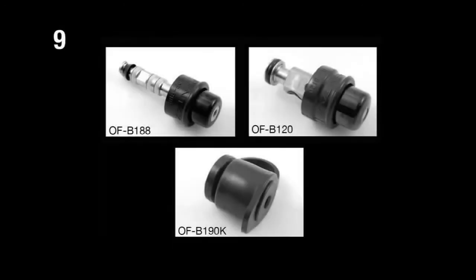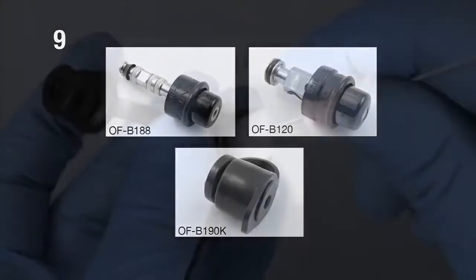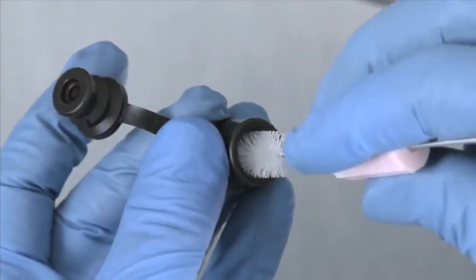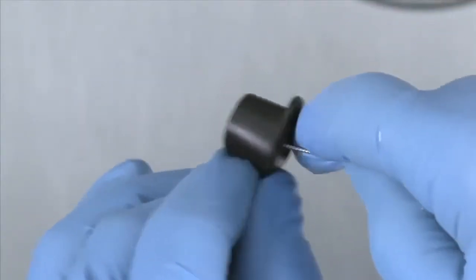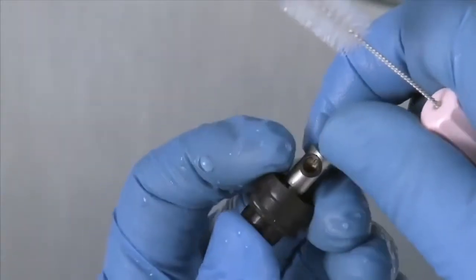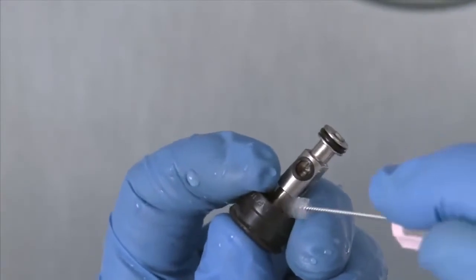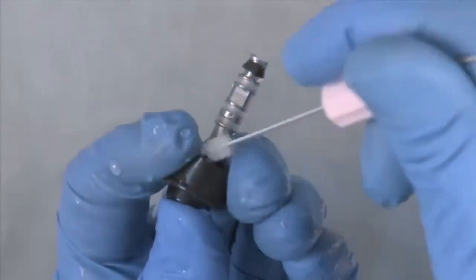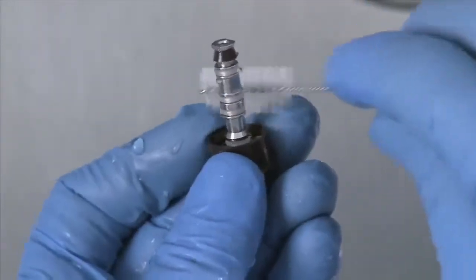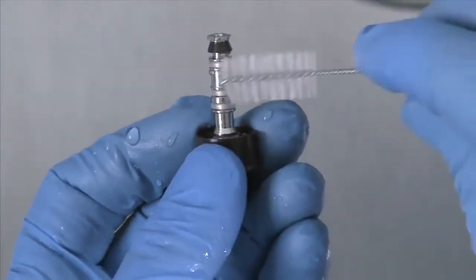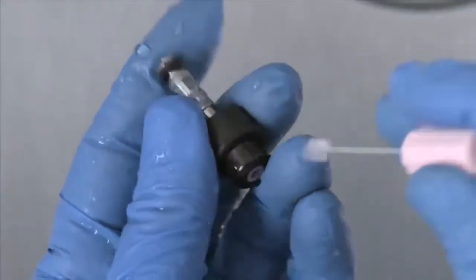Step 9: Clean the endoscope's components. Clean and brush all the endoscope components one by one as described in the Pentax reprocessing manual, making sure to depress the valves to access recessed areas. Inspect the O-rings prior to use and replace any that are chipped or damaged. Replace worn or damaged items to avoid spitback and or leakage.